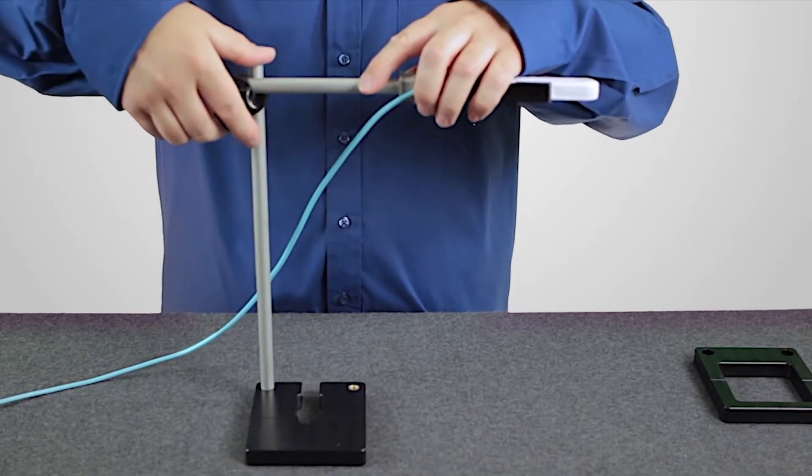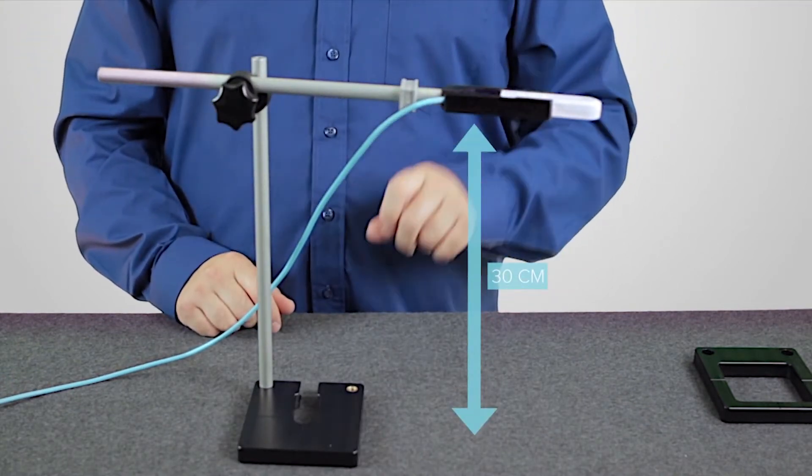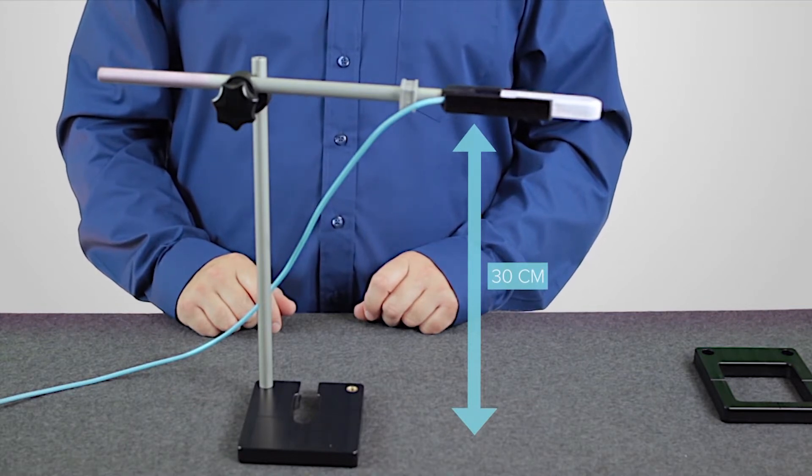Here we place the sensor at 30 centimeters from scattering material, which is the equivalent of free in air for ion chambers.